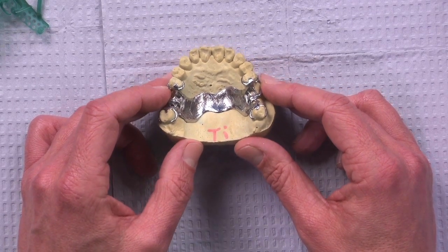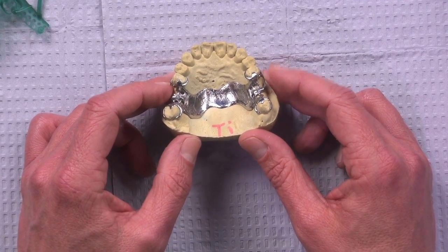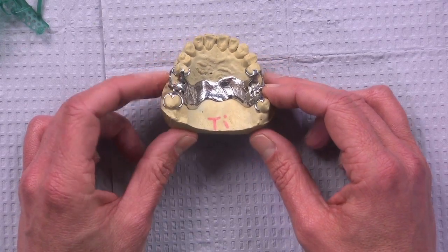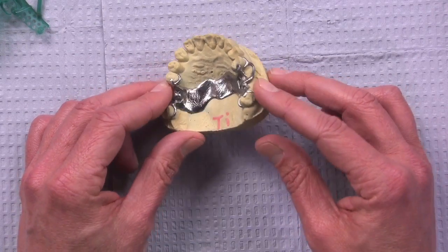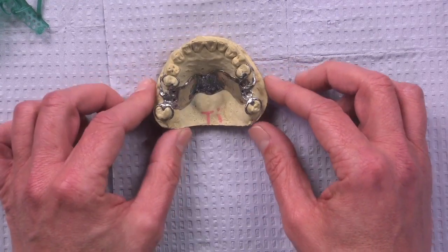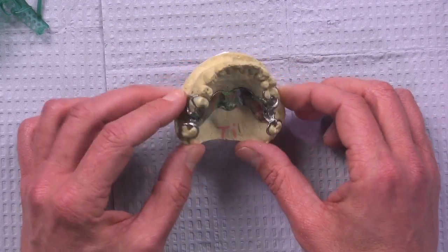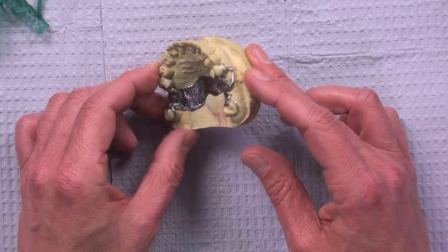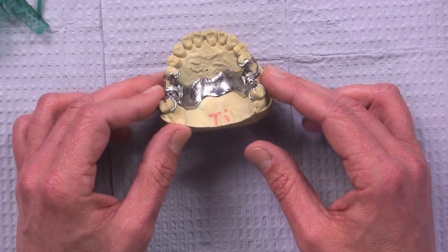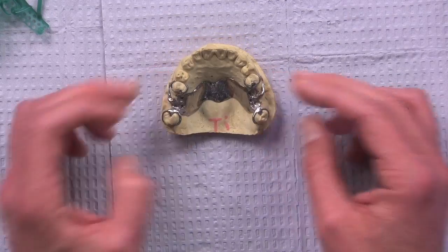So whether it's a female, for example, who breaks out with costume jewelry, or somebody who just suspects they are, or maybe it's completely psychosomatic, you now have something made out of titanium, the same type of titanium that we screw into your bone for an implant, non-reactive, been used in the body for decades, and we can now make your partial out of that, so you don't have to worry about metal allergy. So, another CAD-CAM partial denture here in titanium. You won't have a lot of use for it, but maybe there'll be one or two occasions a year when you'll want to use it. And the good news is it's now fabricated with CAD-CAM, so we're seeing better fit and lower returns.